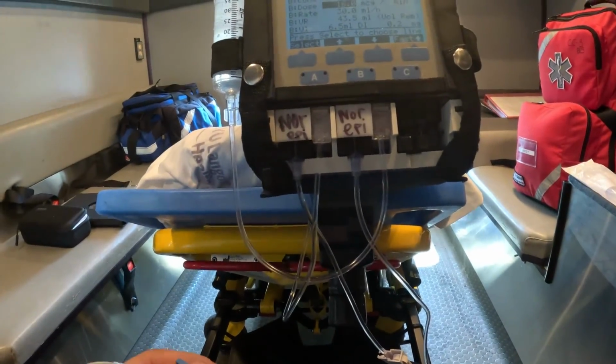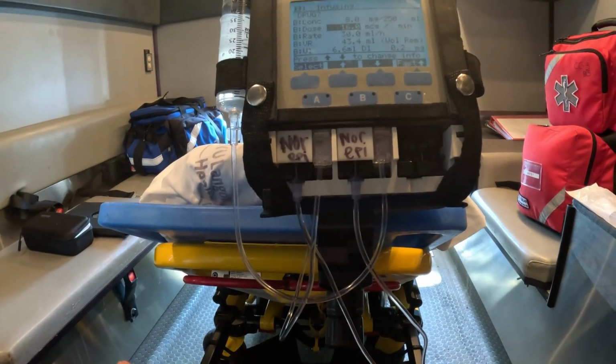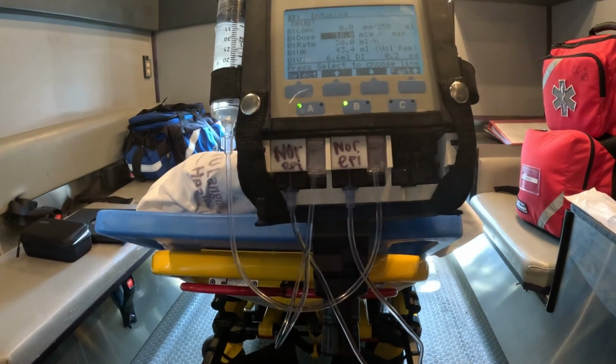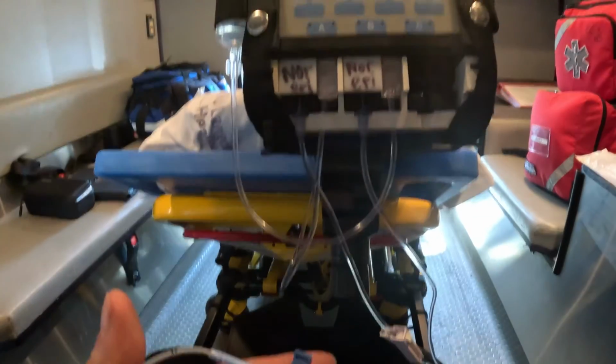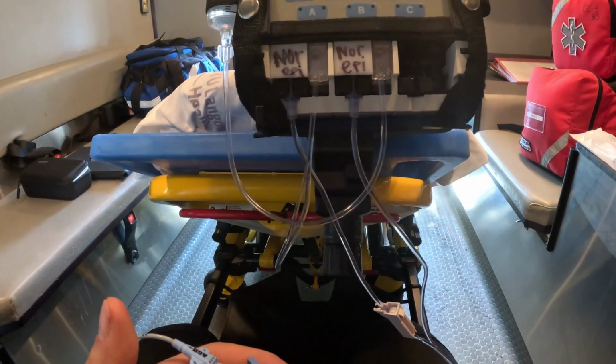Be very careful. Those patients in the hospital, I don't even turn, because if you turn, they may go into cardiac arrest. So be very gentle with handling them. And make sure you do not disconnect the patients off the pump for a prolonged period of time in order to flush your medicines. So this is how I would set up my pump.